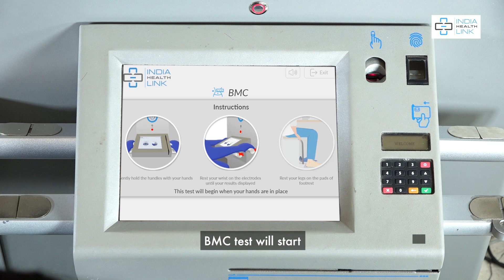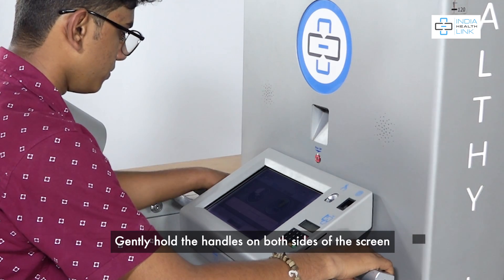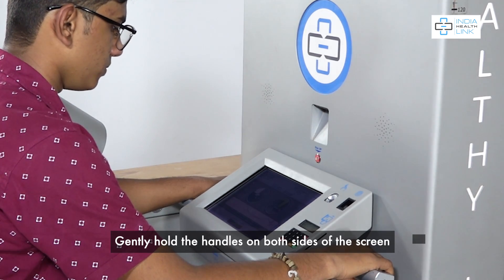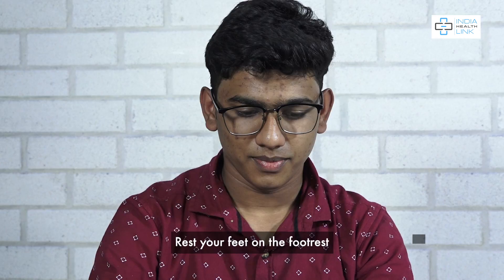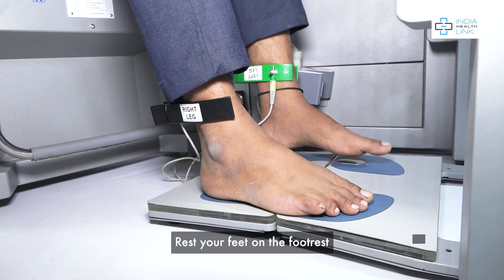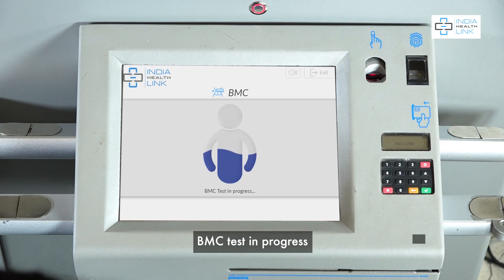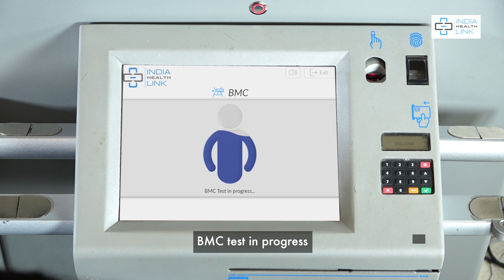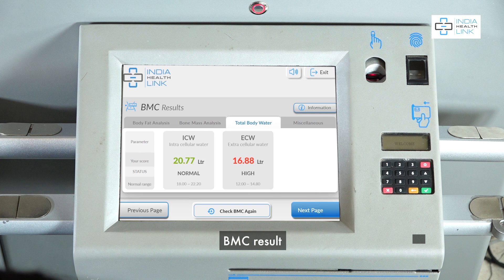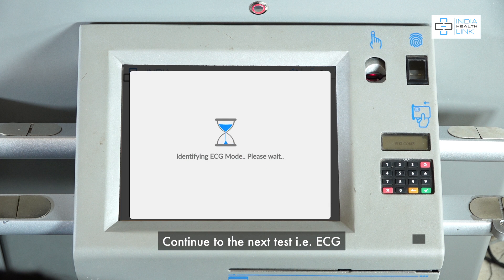BMC test will start. Gently hold the handles on both sides of the screen. Rest your feet on the footrest. Wait till the results are displayed. BMC test in progress. View BMC result and continue to the next test.